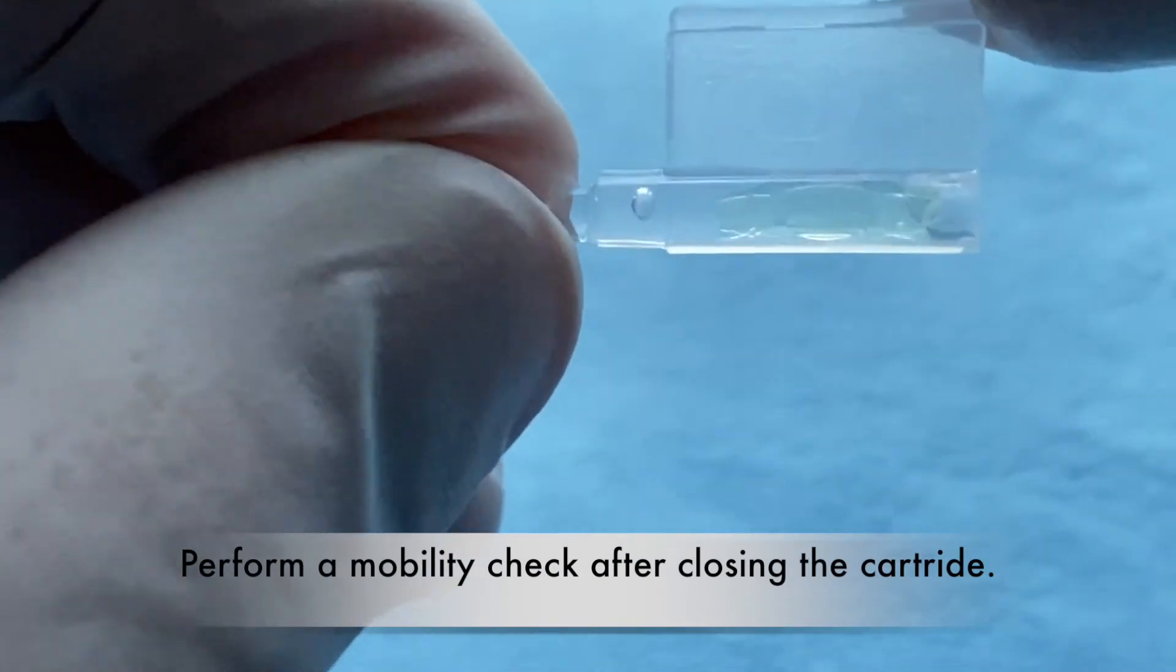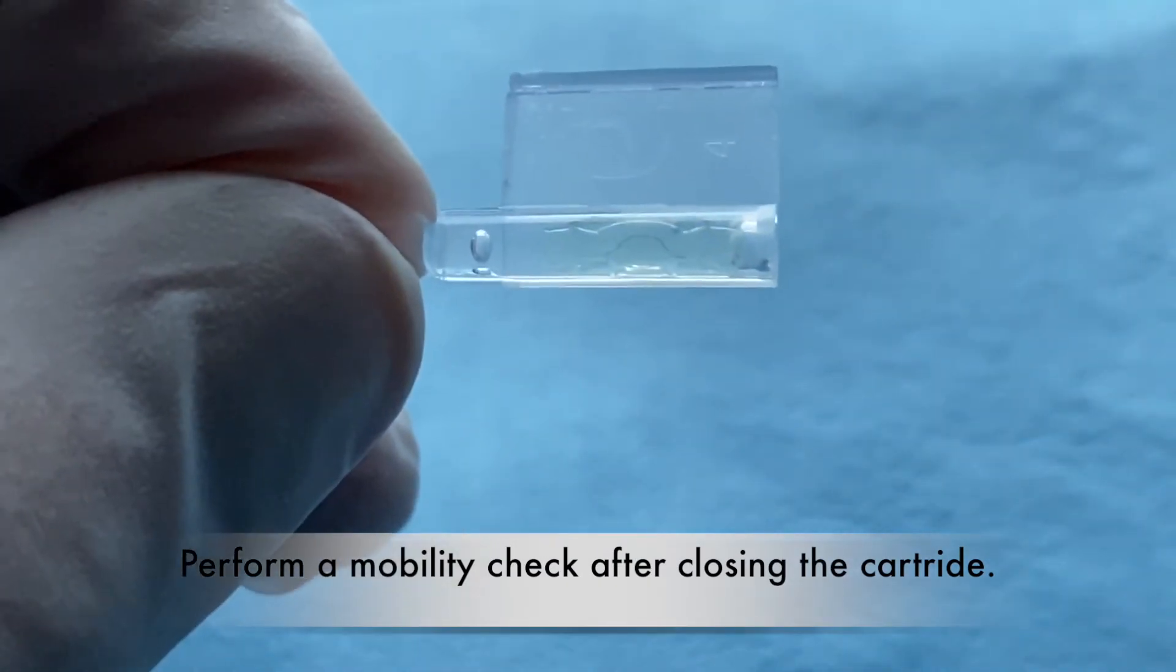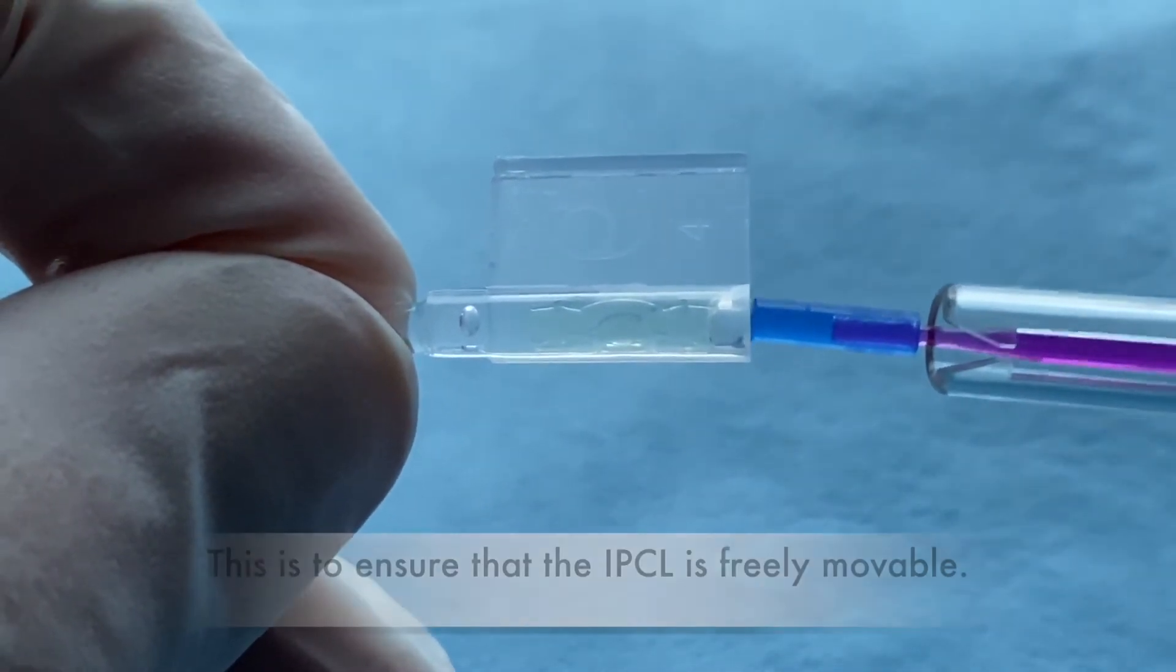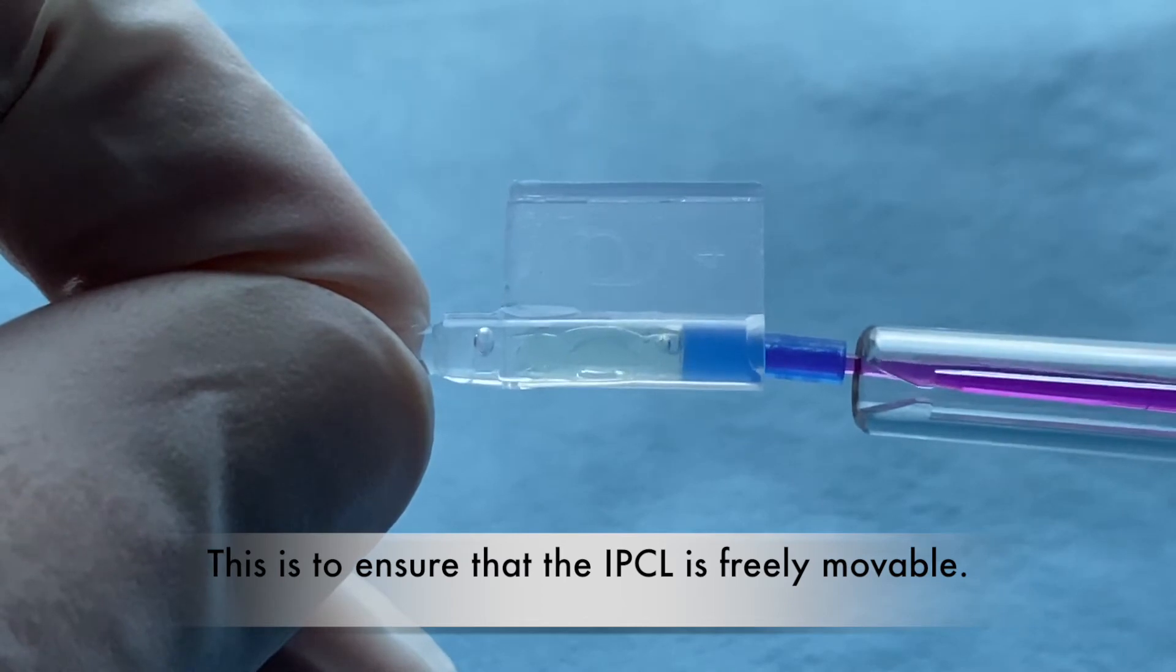Perform a mobility check after closing the cartridge. This is to ensure that the IPCL is freely movable.